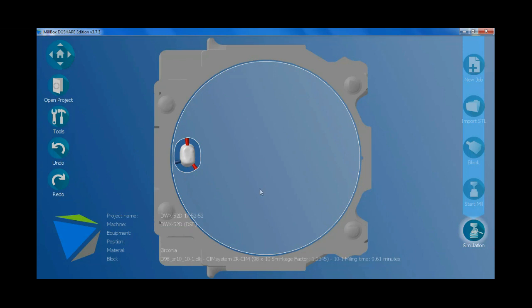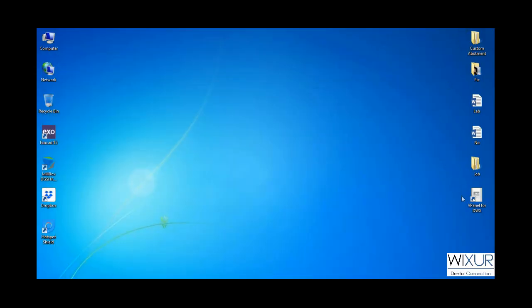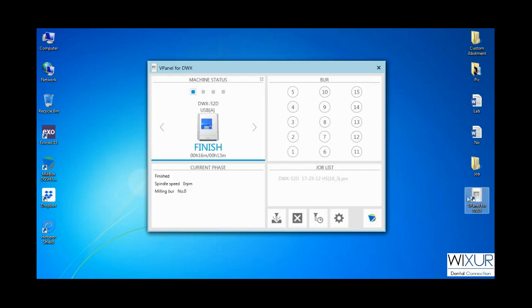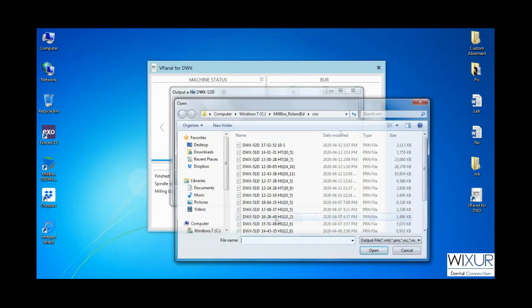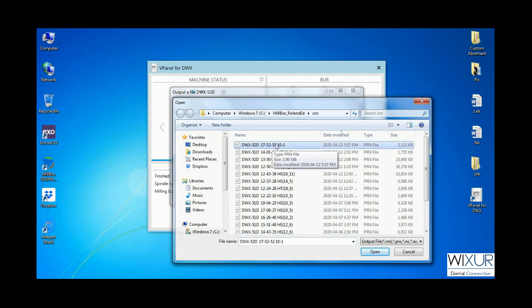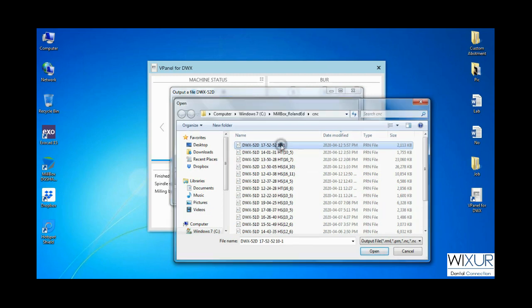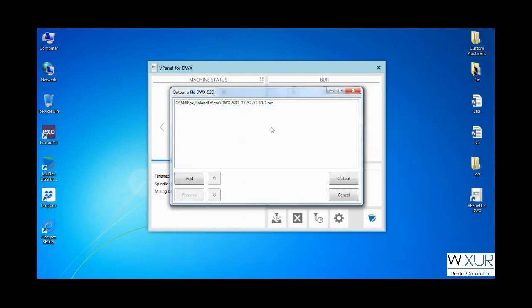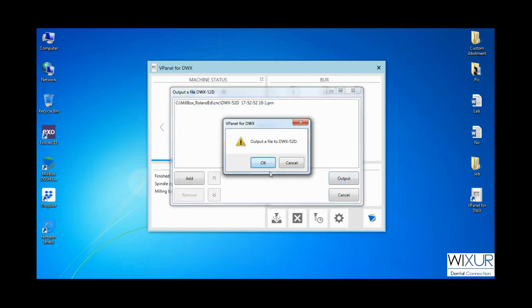I need the project name shown here to upload the job in the milling panel. I open the milling panel. Click on output a file that is with a milling symbol. Click the project name. Open it and click output. And click OK.